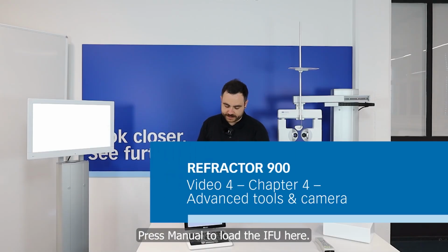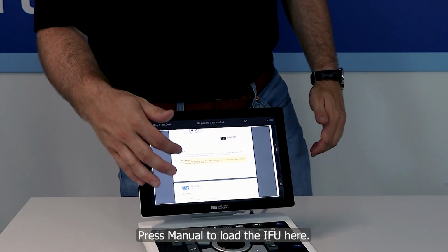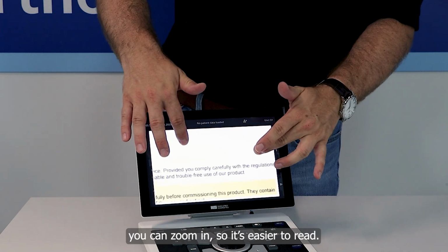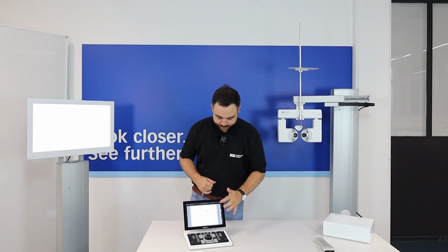If you press on the manual, the IFU will load here, so you can read it here, but you will also find it on our website. If it is too small, that's the only screen you can zoom in, and then it's easier to read. The other screens are not zoomable.